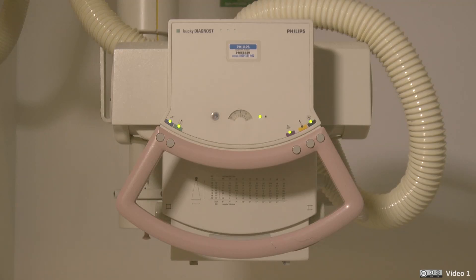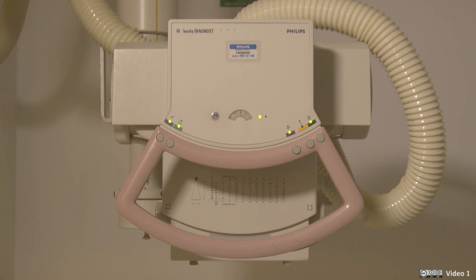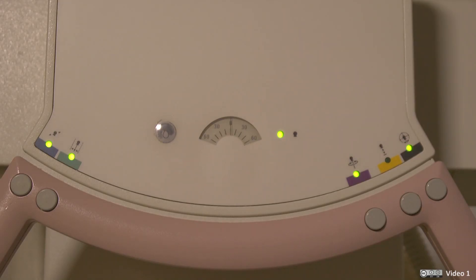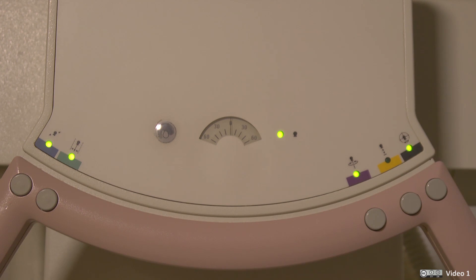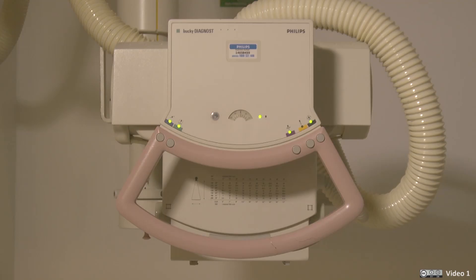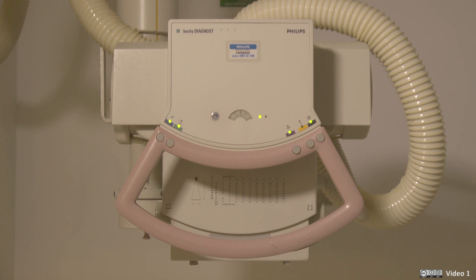The next item to consider is the x-ray tube, which is contained within this unit. If you remember back to the lesson on x-ray tubes, we learned that they produce a lot of heat, so there is a cooling system — which is the purpose of these hoses.